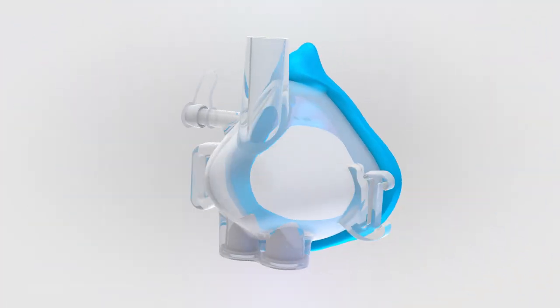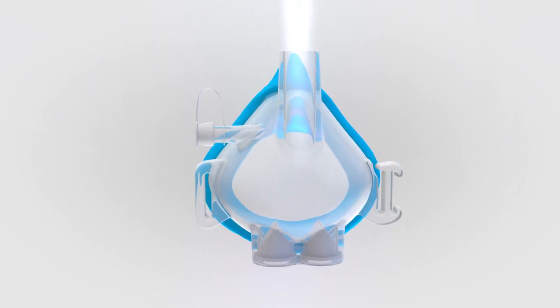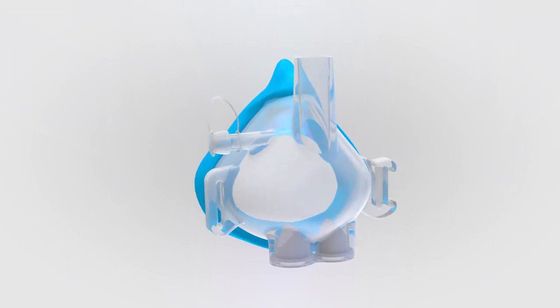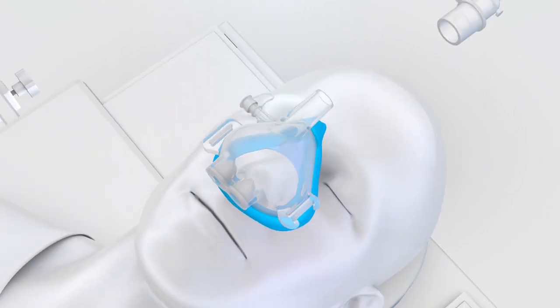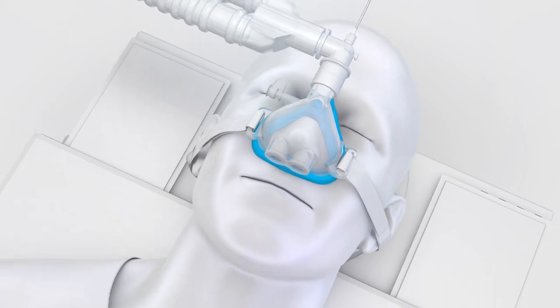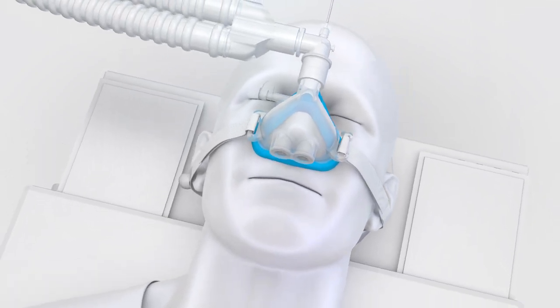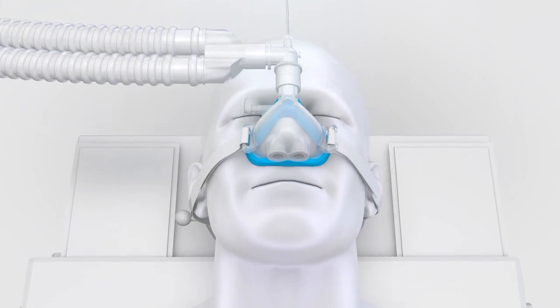The SuperNova device is a nasal anesthesia mask designed to support ventilation in patients who are sedated with anesthetic medications. The SuperNova was designed to create a complete seal and when combined with an oxygen source and pressure relief valve creates a positive airway pressure allowing a clinician to provide ventilatory support to patients in the supine, lateral, and prone positions.